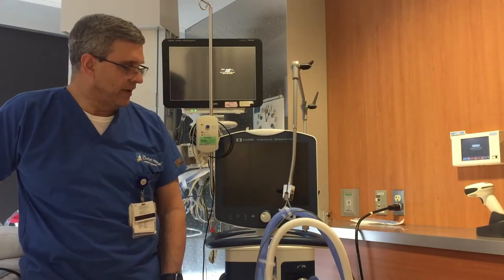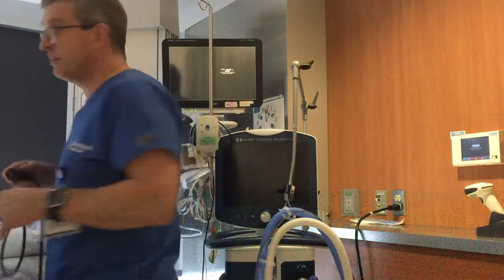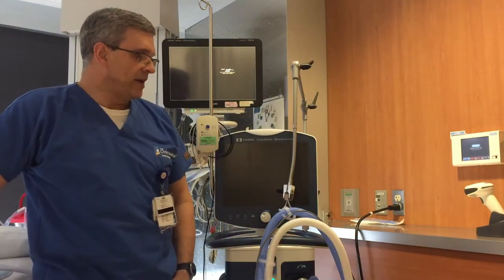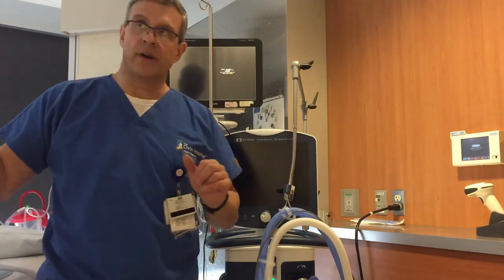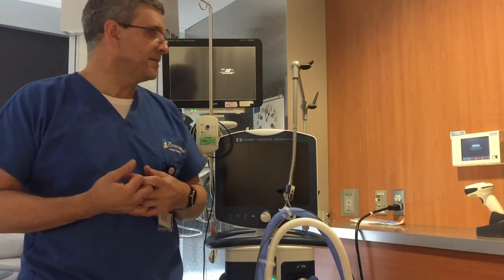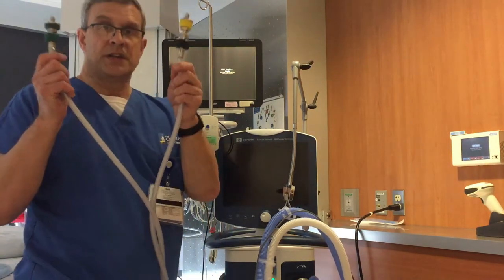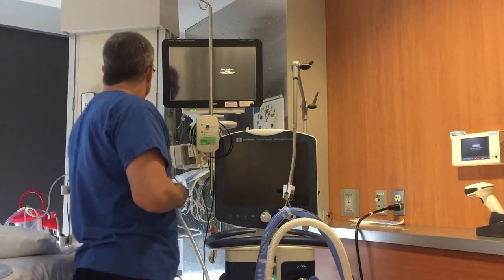Now I'm going to show you how we hook the ventilator up on initial setup. There are three main connections. First, we plug it in — always into a red plug, so if the power goes out, it'll be connected to the generator. The ventilators do generally have a backup battery that'll run 30 to 60 minutes, but you always want the red plug. Then we have oxygen and air connections — that's how the ventilator delivers a specific FiO2. We have quick connects here, so we just pop those into the wall.